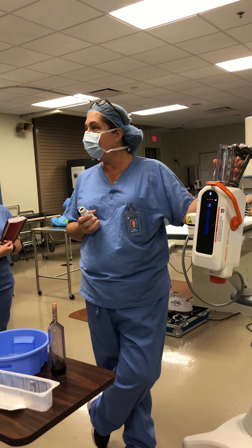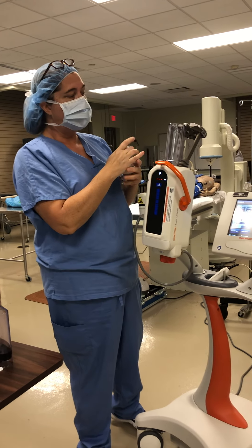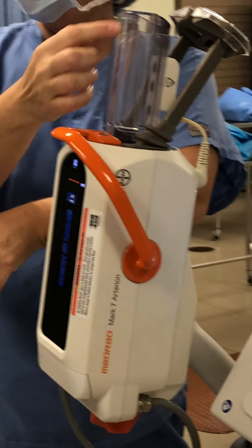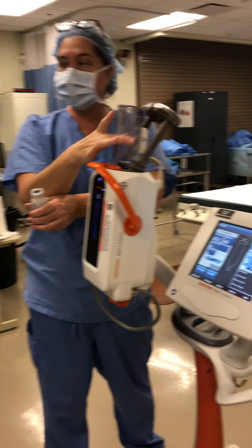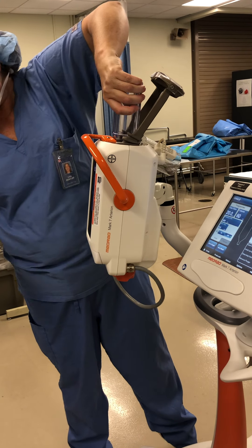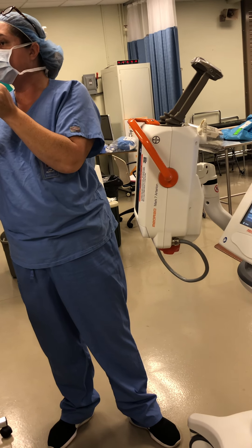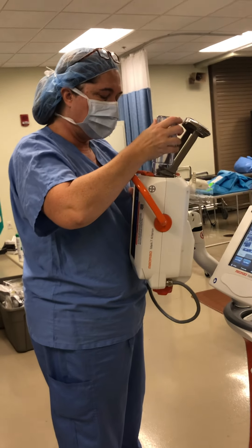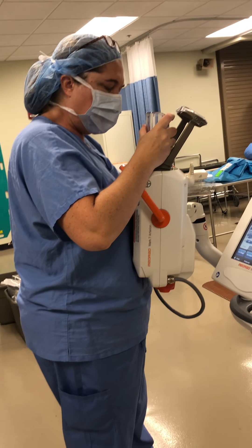You can feel it — it's pretty warm. I also want you to notice — you'll all have to come up front to see this — there are some ovals, black with white outline, little ovals on the back of this. You call this part the jacket. This is not disposable; it stays with the machine. That's this hard piece, and it will come out. You just pull it out — that's the jacket — so if it did get dirty, you could take it out and clean it with soap and water. It does go only in the back; there's a little pin down in there that you have to align when putting it back.